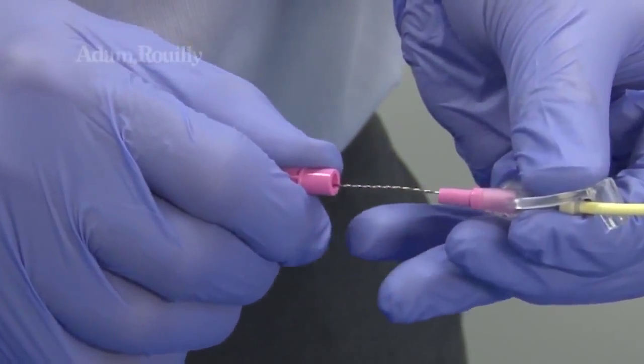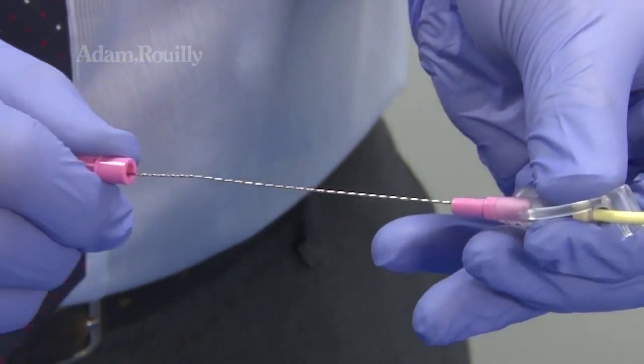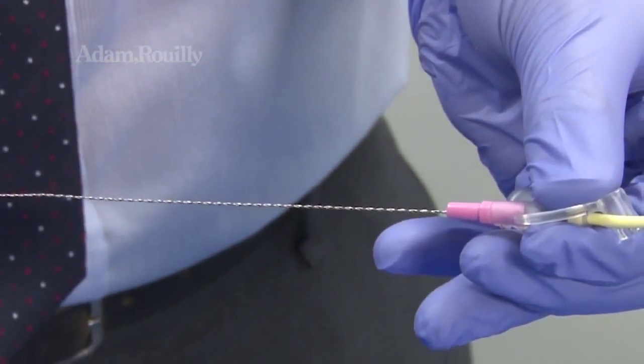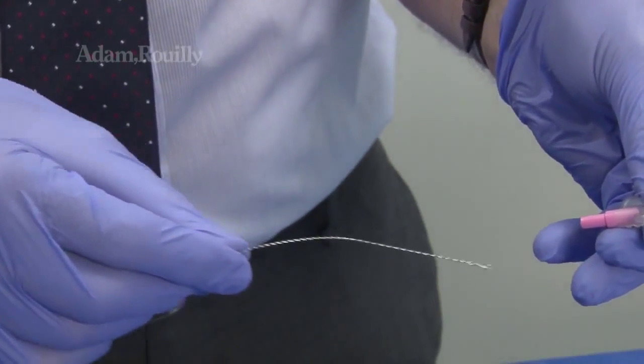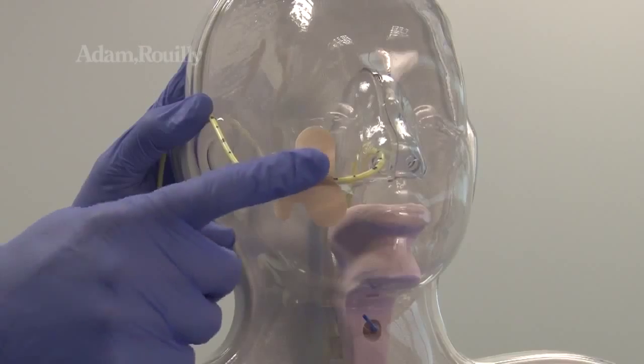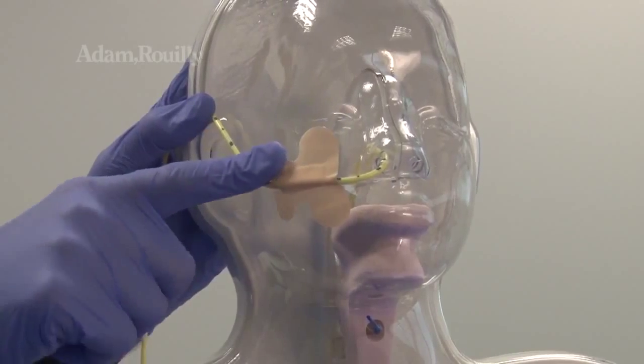Guide wire removal can also be performed, and adhesive dressings can be applied to the model.